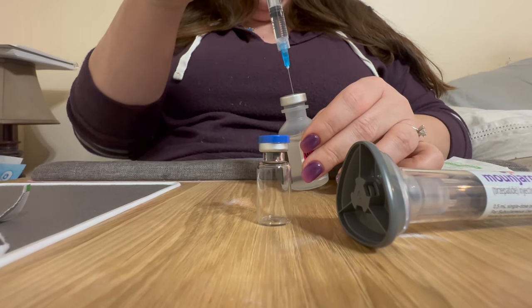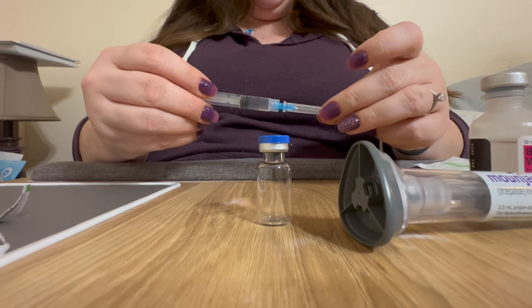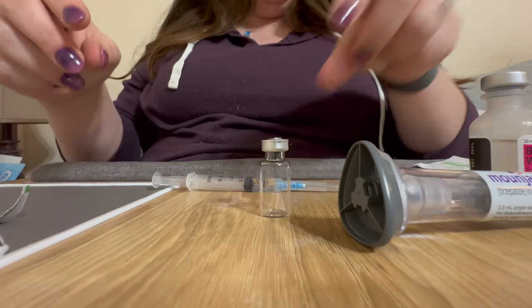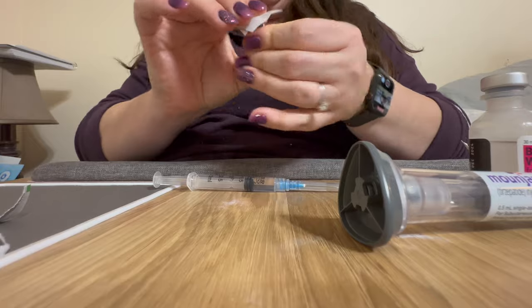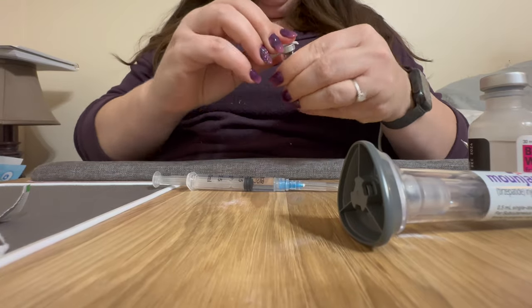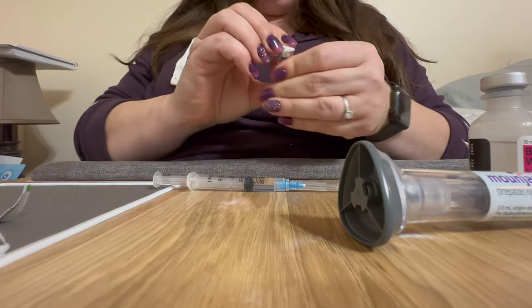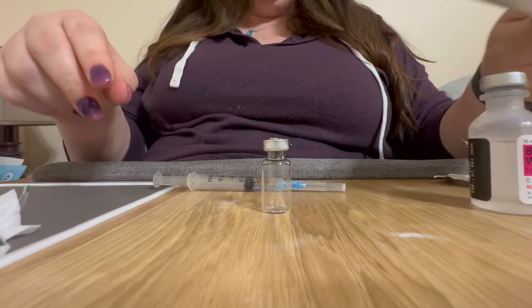I'm going to take the cap off the sterile vial now — once it comes off it doesn't go back on. Before I do anything with the top, I'm going to clean it with an alcohol wipe. Disclaimer: this is not medical advice, I'm not a doctor, please consult your healthcare professional for advice. This is just my own experience with how I split my own doses of Mounjaro.